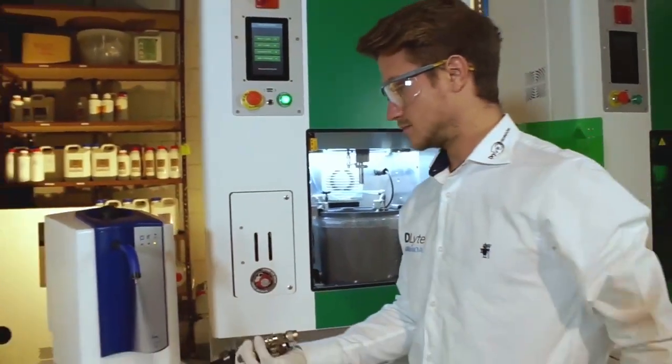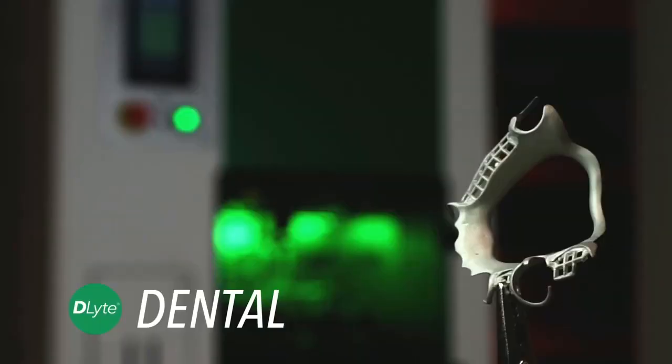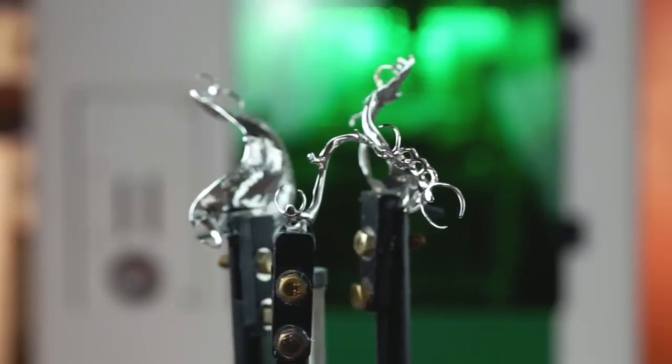The process maintains the geometry of the pieces with a minimal removal of material and without affecting the non-conductive parts.